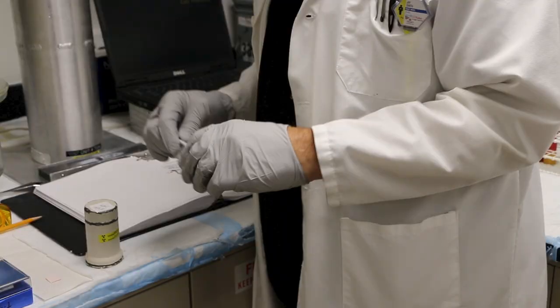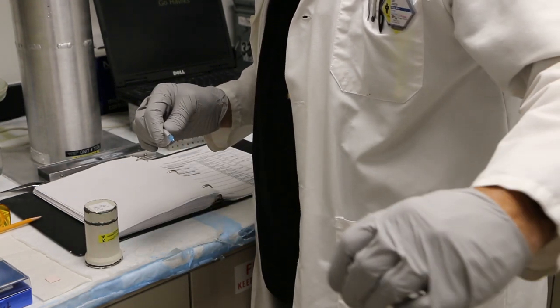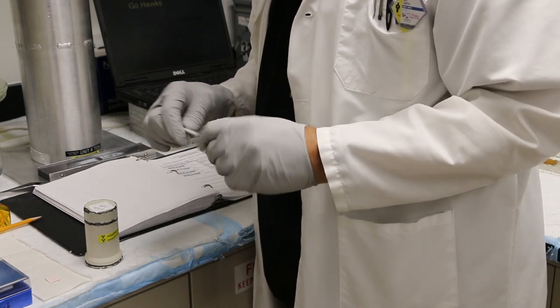The secret to successful cap removal is to pin your dominant hand against your body so that it remains entirely immobile. Grasp the cap with your non-dominant hand and pull the cap swiftly away from the syringe, all the while your dominant hand remains still.